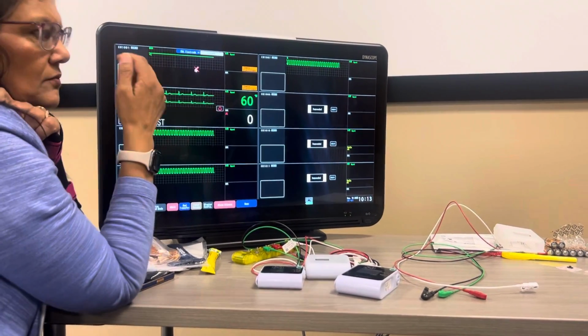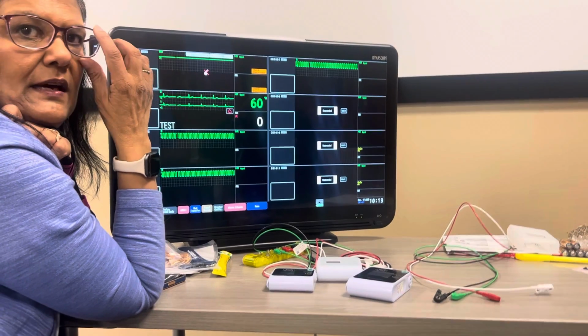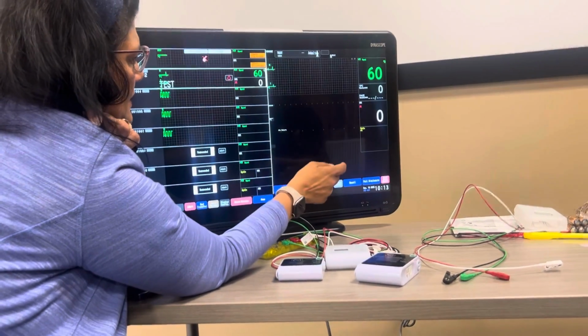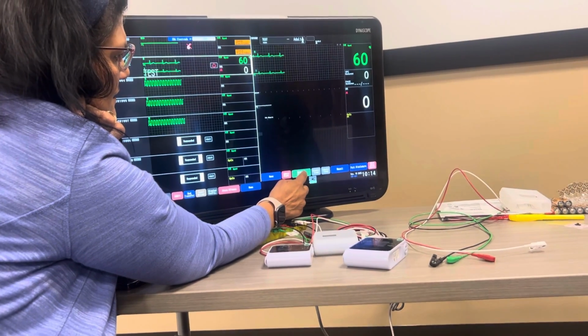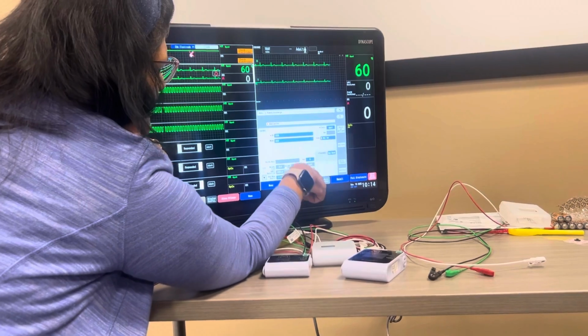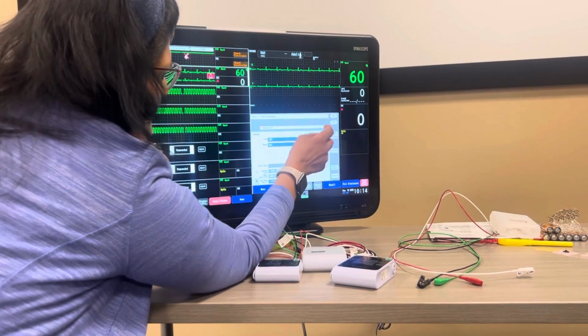Can we customize what those are named? Yep, yeah, but I don't have the names yet, so Embria's going to get it for me. No worries. Yeah, because 1 through 7's ER. Okay, so we're just pretending it's ICU 2.